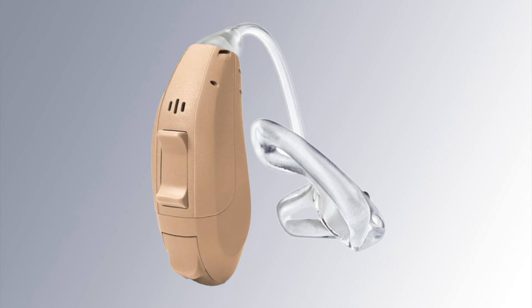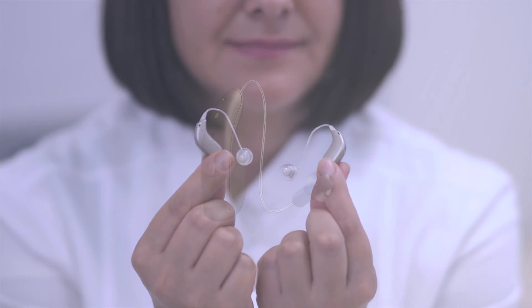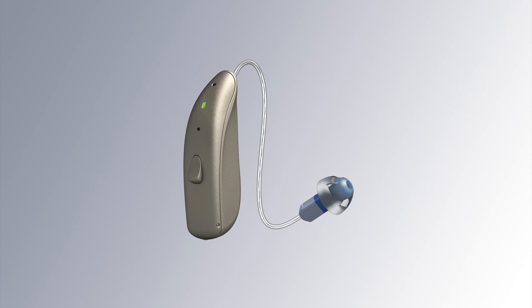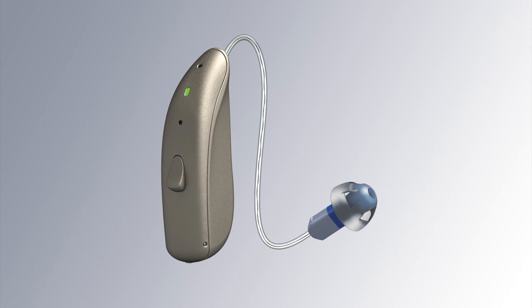Although there are many different types of hearing aids, we will focus specifically on receiver-in-canal style, which is by far the most popular and widely used style. This style hits the sweet spot in terms of comfort, great feature set, and ability to fit a wide range of not only hearing losses but also different ear sizes and shapes.